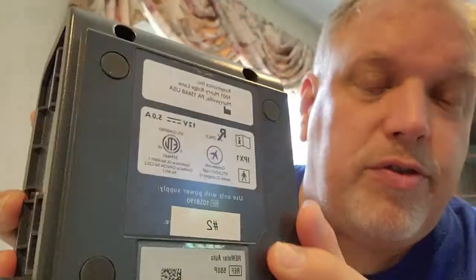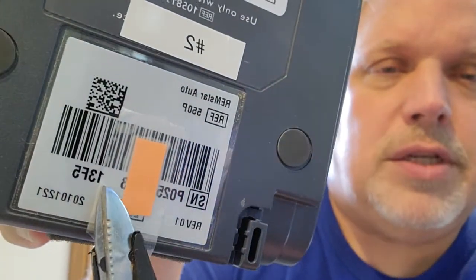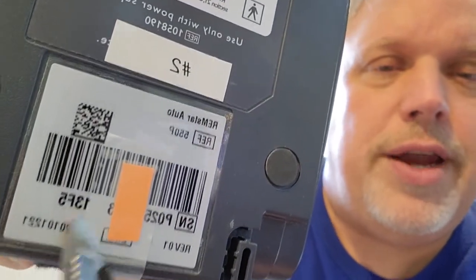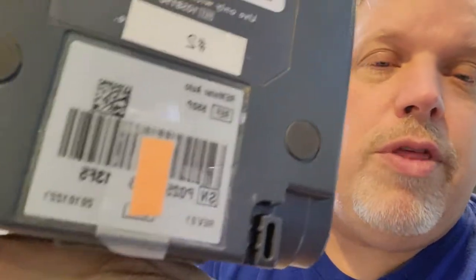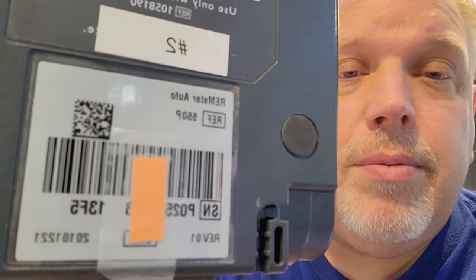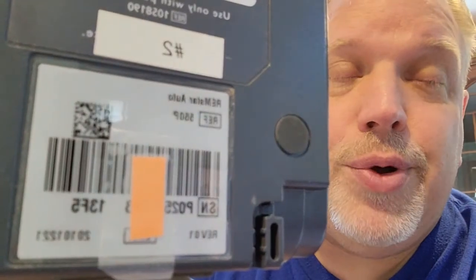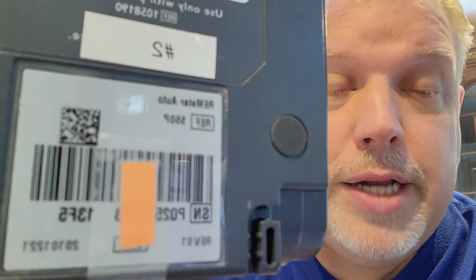This is an A-flex. I also have a C-flex. The problem is when I entered in the serial number, it told me that the unit was not affected by the recall. If you look at the serial number, it has the serial number and then a space and then four digits — mine is 13F5. If you put a space in there between those numbers, you will not be able to get it set up under the recall. It will not come through. So please make sure when you put it in, do not put any spaces in there.